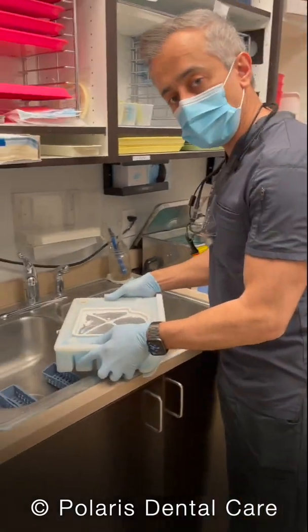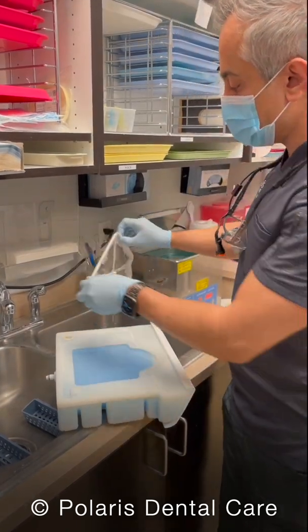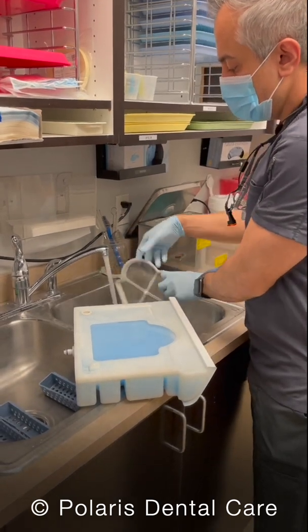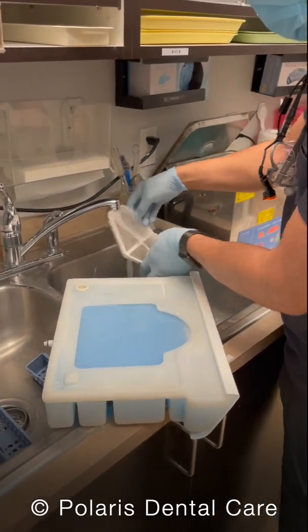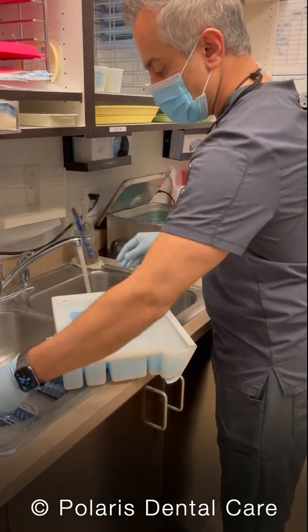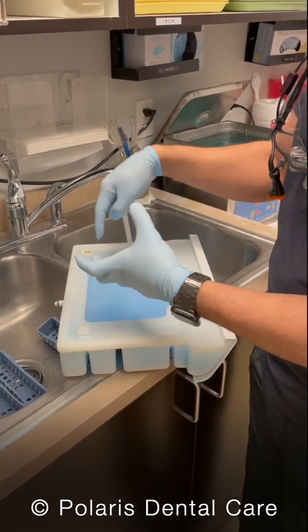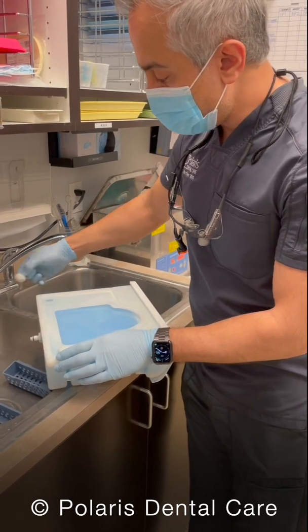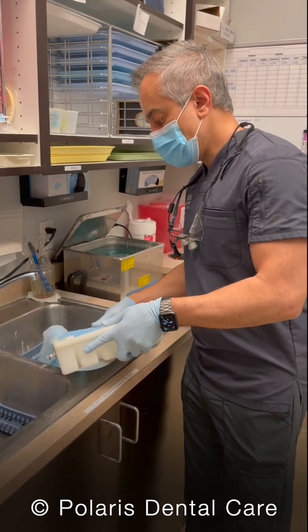The first thing we have to do is dump out the old coolant. Make sure you have a clear sink. Remove your filter. I'm going to rinse this under the water — you can see those are Zirconia particles in there, and that's what I'm washing away. This is all water that has particles mixed in with it, so I need to drain it. There is a drain plug right here that you can uncap and then drain all of that water out.